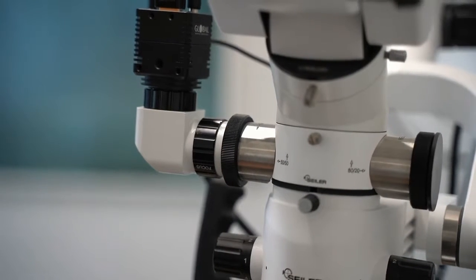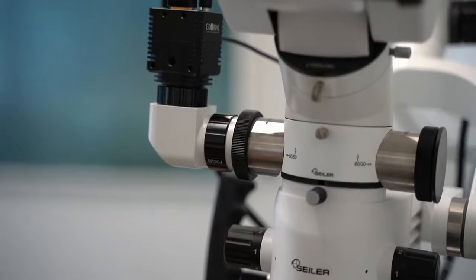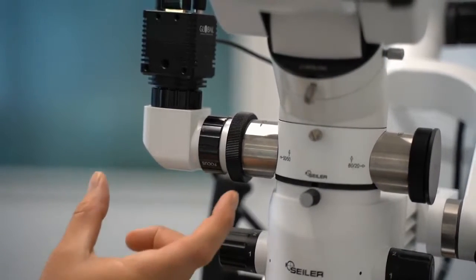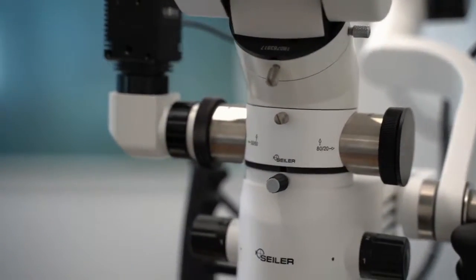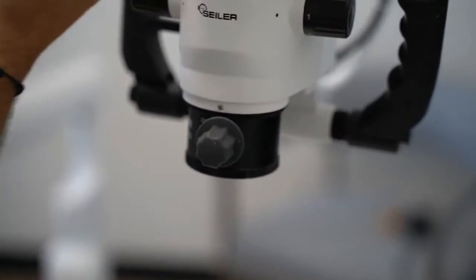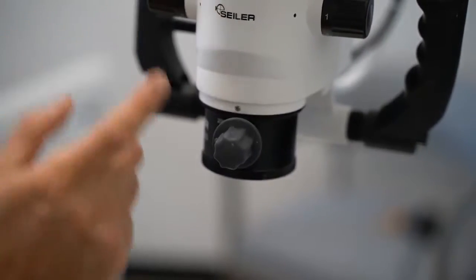I'm not big on that because I don't find it practical as I'm working in different rooms. I know every microscope company will teach you about parfocaling, but for me, it's having the freedom, like with this variofocus, this fine focus down here. I wanted this in my camera because it's very easy to have this corrected length up here as opposed to here.